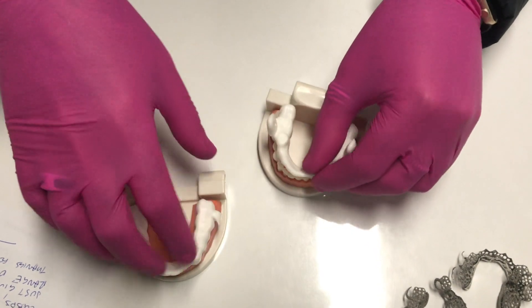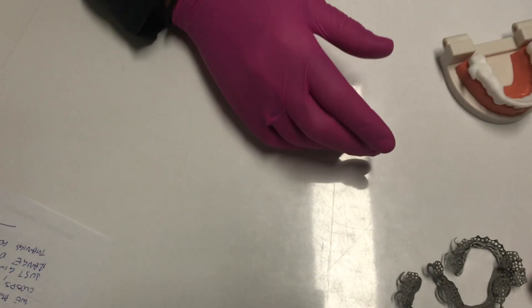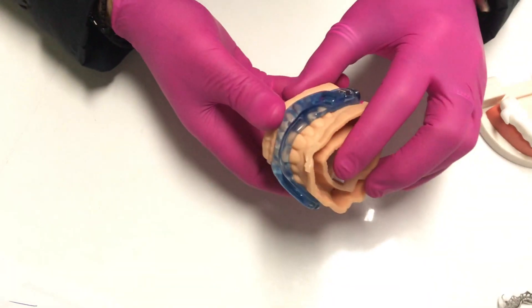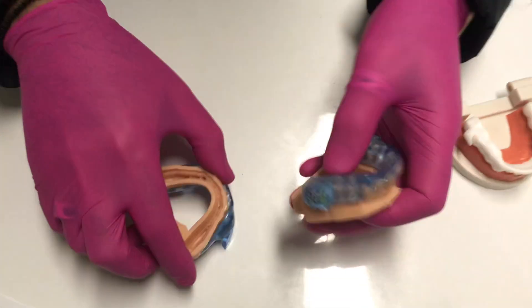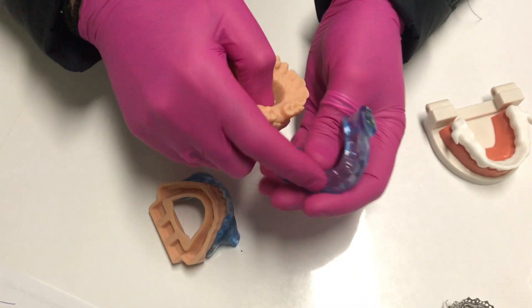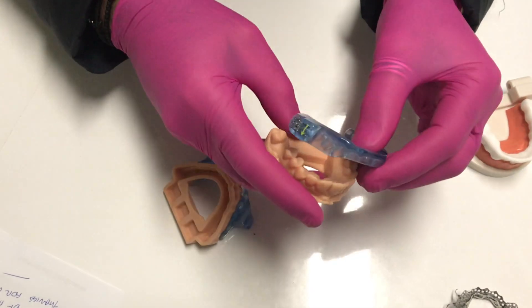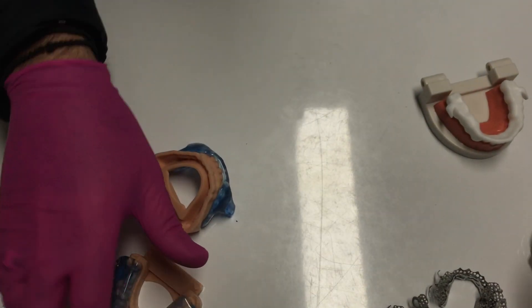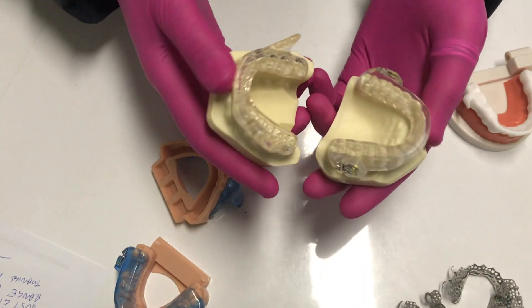The other appliances we make here also are your standard dorsals, again CAD designed milled with a soft internal liner, which is just nice and soft and very comfortable for patients. Available in blue and in clear appliances.